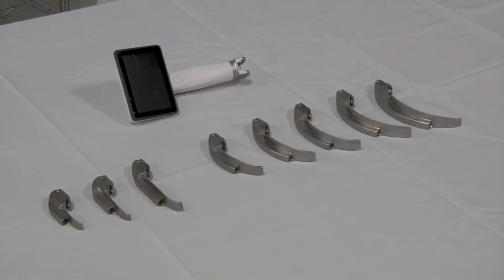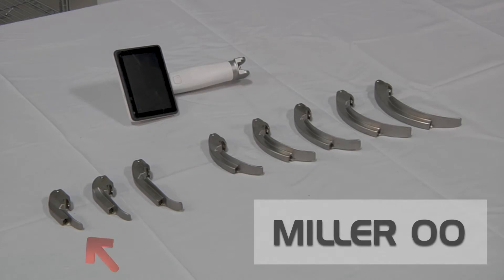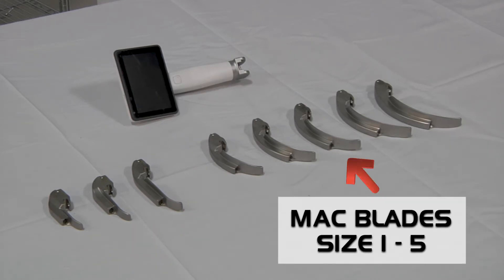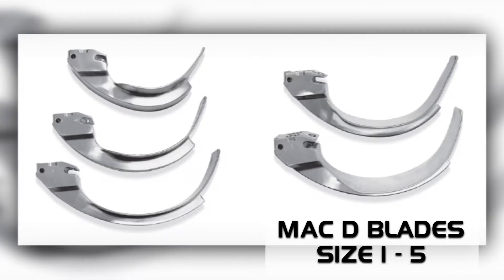We have 13 reusable blade sizes available: Miller 00, Miller 0, Miller 1, MAC blades size 1 through 5, and MAC D blades size 1 through 5.